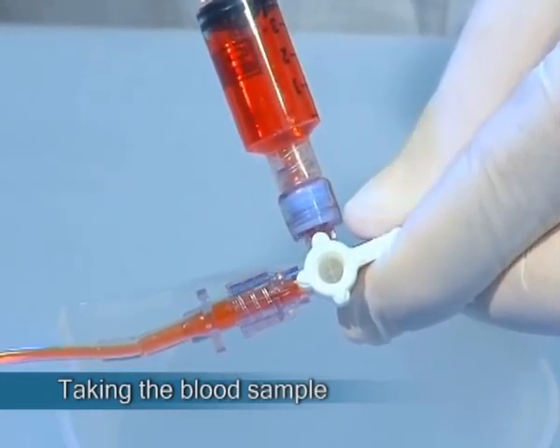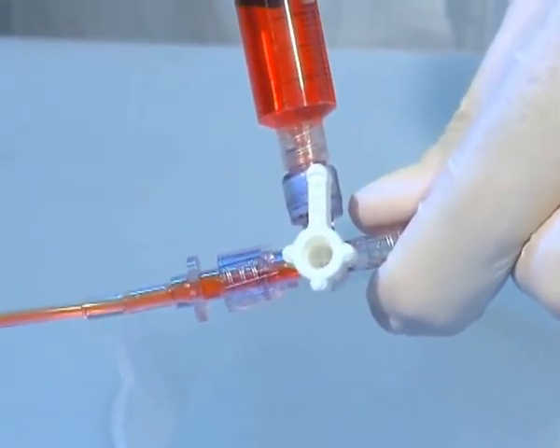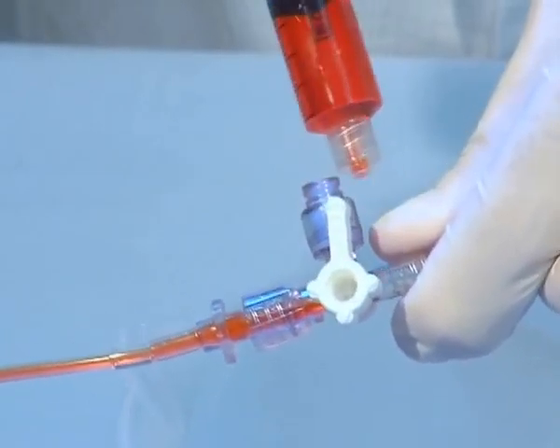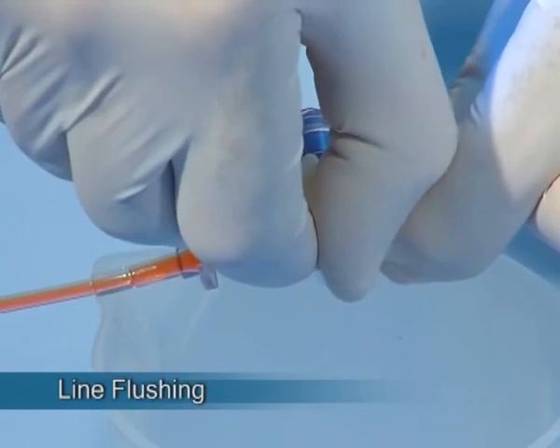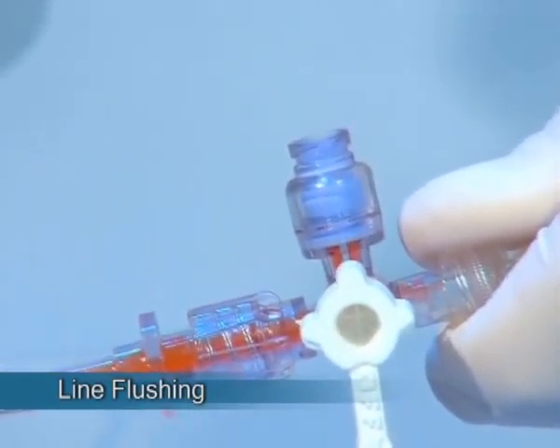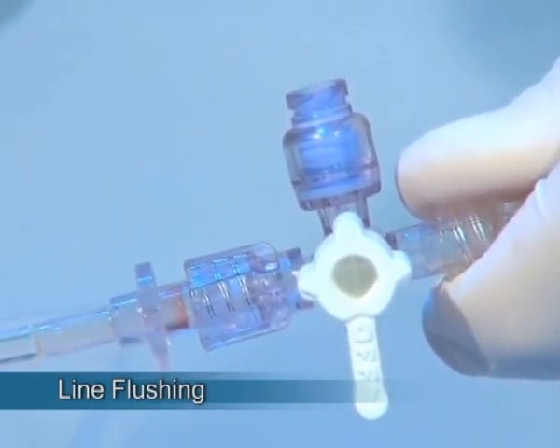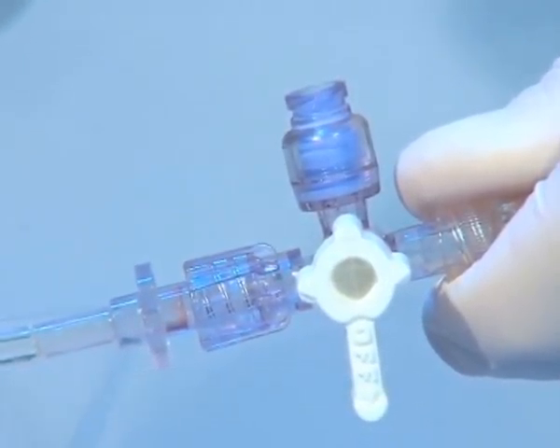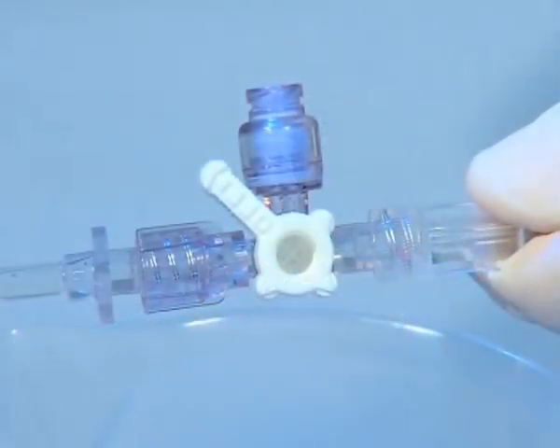To assure no blood spillage from the syringe, the Marvelous handle should be turned to the closed position prior to syringe withdrawal. Line flushing should be performed according to institute policy. The main benefit of using the Marvelous stopcock here is that just by turning the handle to the all open position and activating the flush device, thorough flushing and zero residual volume are assured.